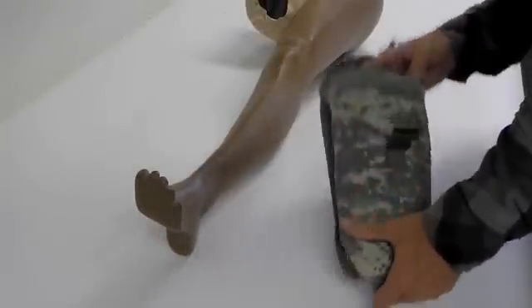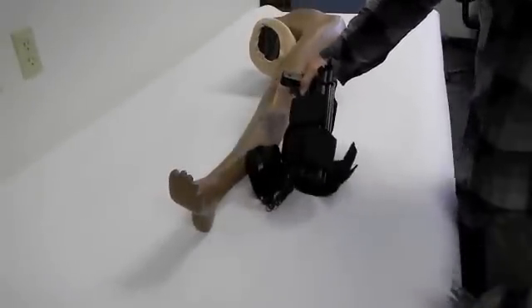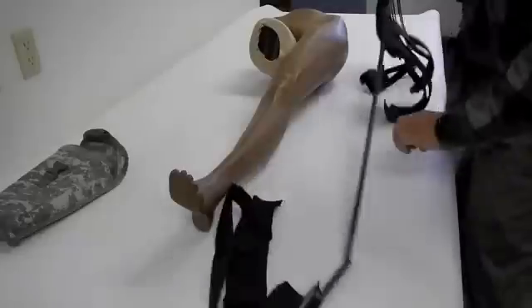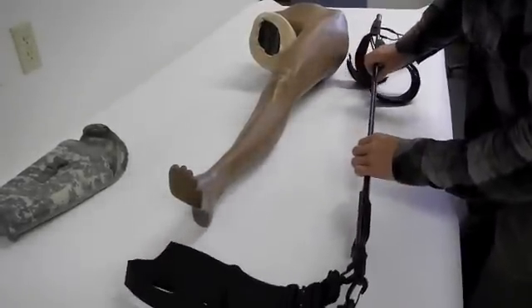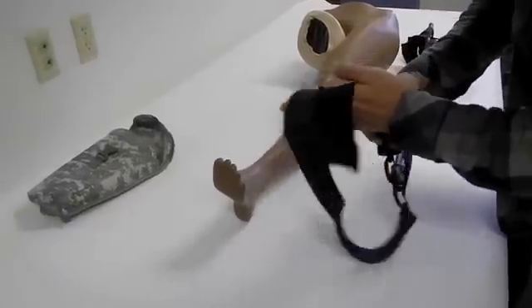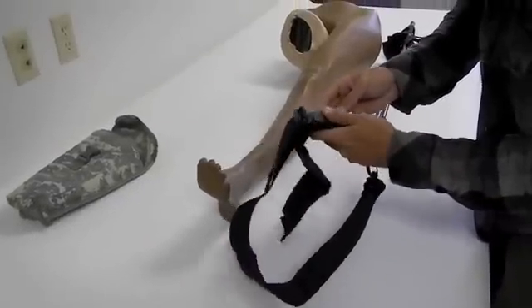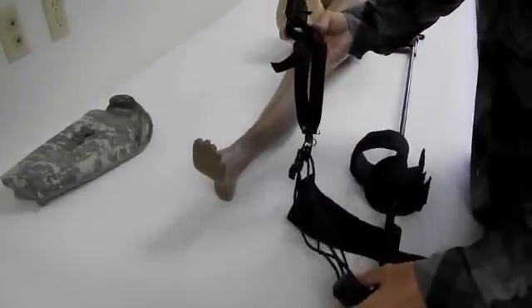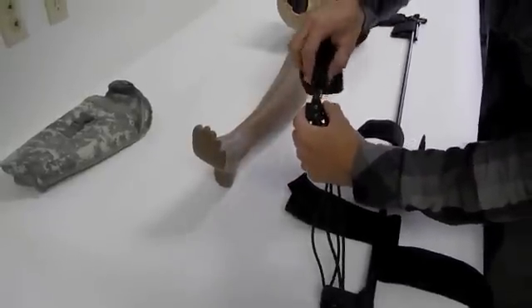Opening this up and pulling the splint out of the bag. Looks like everything is already attached. It snaps together pretty nicely. You can see the ischial strap which has got some elastic padding and a military spec Cobra buckle right here. On the other end we have an ankle hitch which is already attached and ready to go. We have a 4-to-1 pulley system on a swivel.